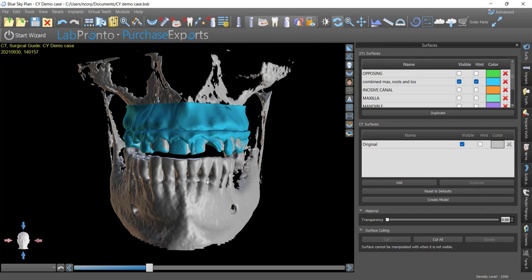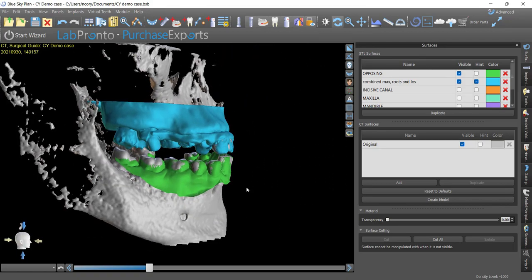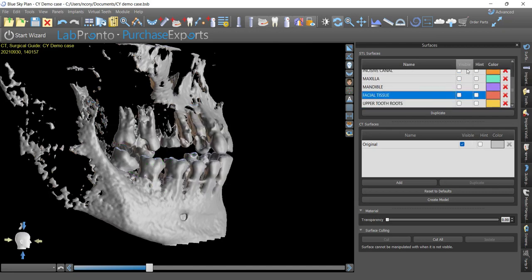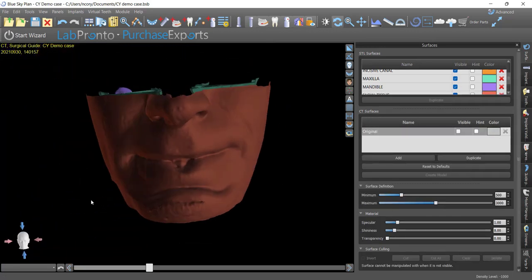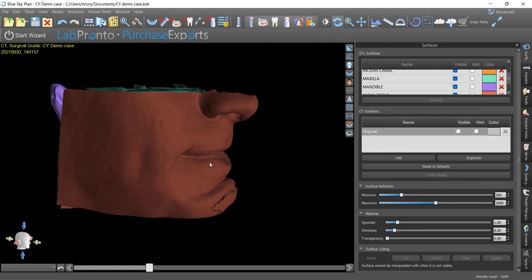So if we want to try to restore this guy into a class 1 or even an end-to-end relationship, we're going to need that space from opening him up slightly. You want to open them up a little bit. Where we're starting from in the case: I brought in the intraoral scans. I've also had segmentation done through Diagnacat, so all of these files you're seeing right here — I didn't do segmentation on them, that's just what was provided to me through Diagnacat.